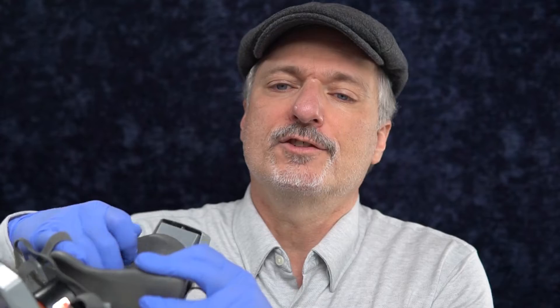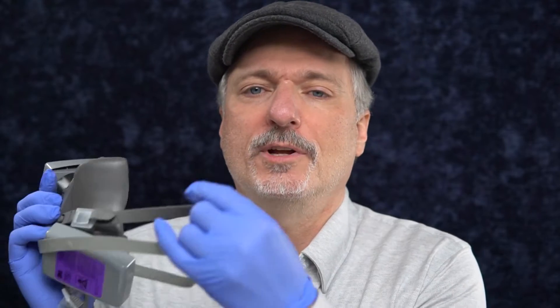What's supposed to be a little more forgiving are elastomeric masks like this 3M 6000 series respirator. It's got an elastomeric rubber seal, a cushion that's squishable, and it's got good head straps to help pull your beard flat against your face even though you're not supposed to have the beard. We'll try that one.